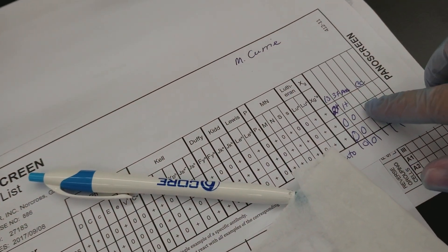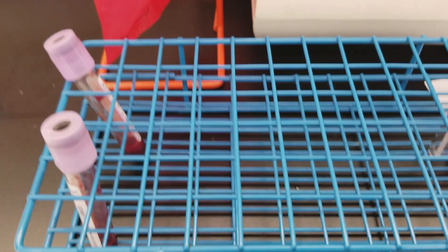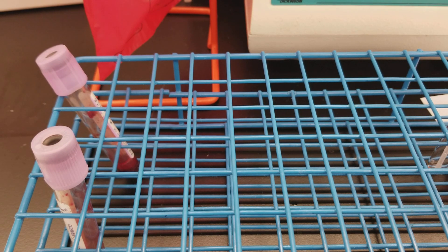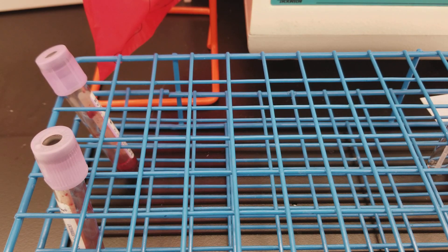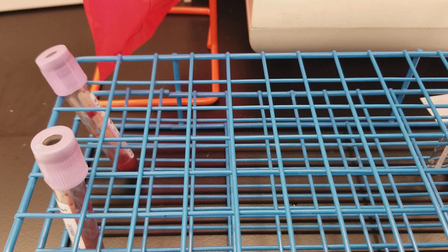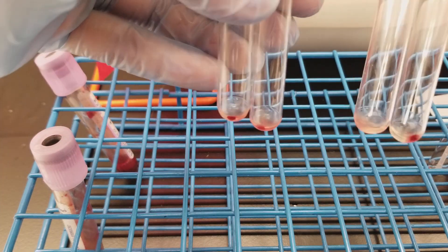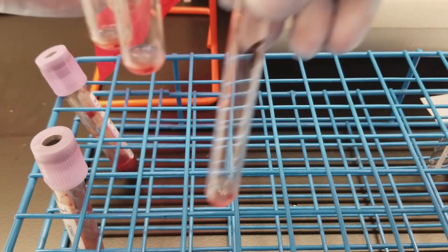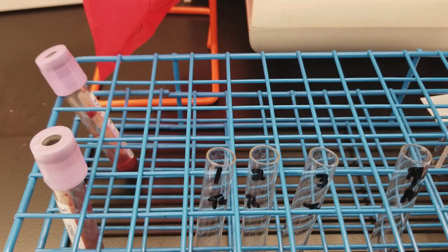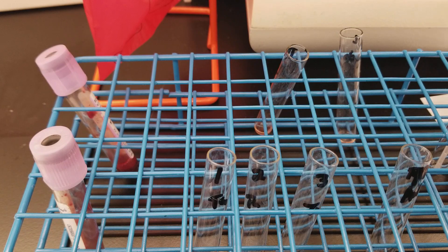Check cells again are reagent cells that we know already have the IgG antibodies, so if we added the anti-human globulin reagents, then the check cells would be positive. If we did not add the reagent like we were supposed to in the AHG phase, then the results would be negative. Okay, so these are all of the cells. So what we're going to do now is we're going to look for agglutination at the AHG stage phase.